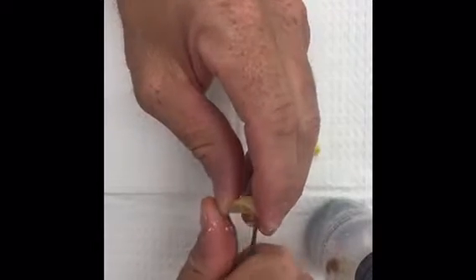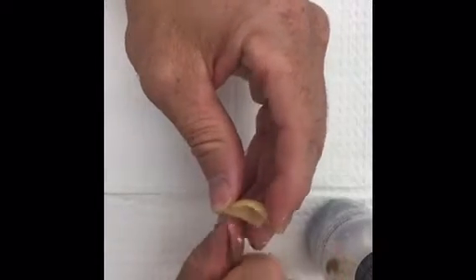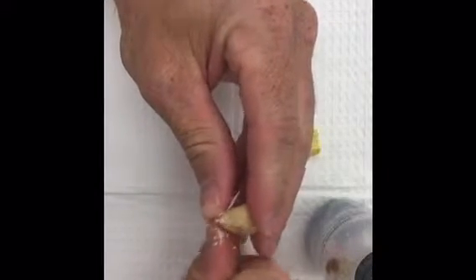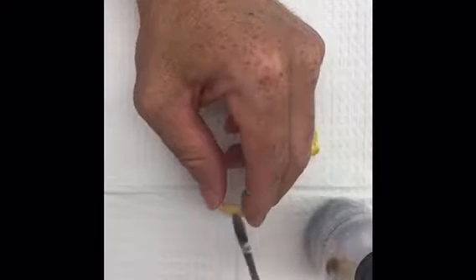This one I've added a bit to the periphery so it might be a little too big — you can take it off if you need to. I just scrape it evenly with my wax tool. Hopefully you have a tool like this accessible. This one's my favorite — it's like a sharp spoon.